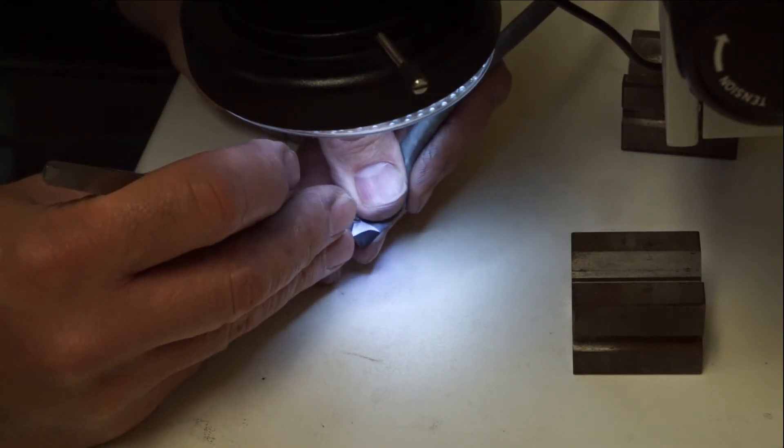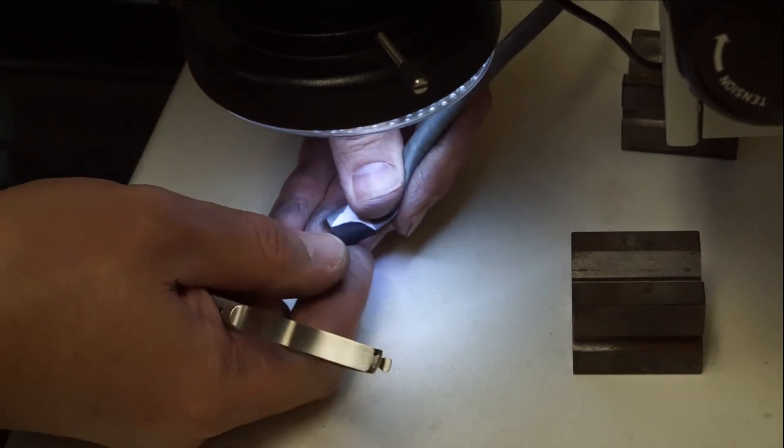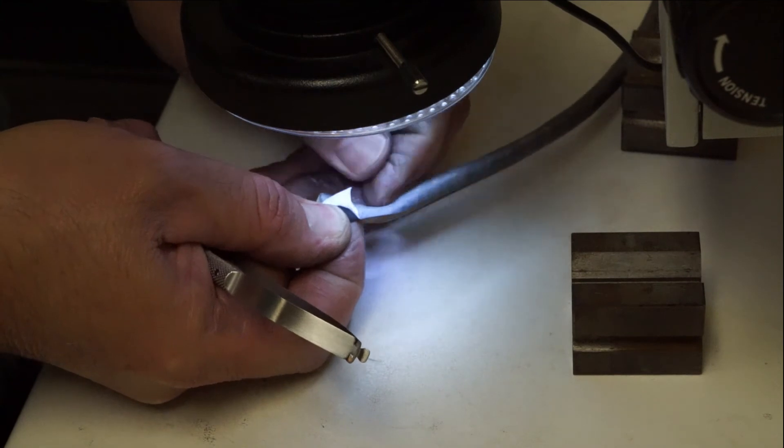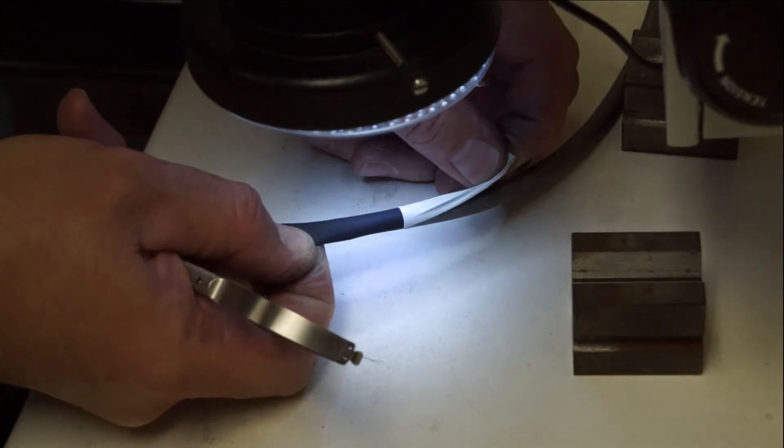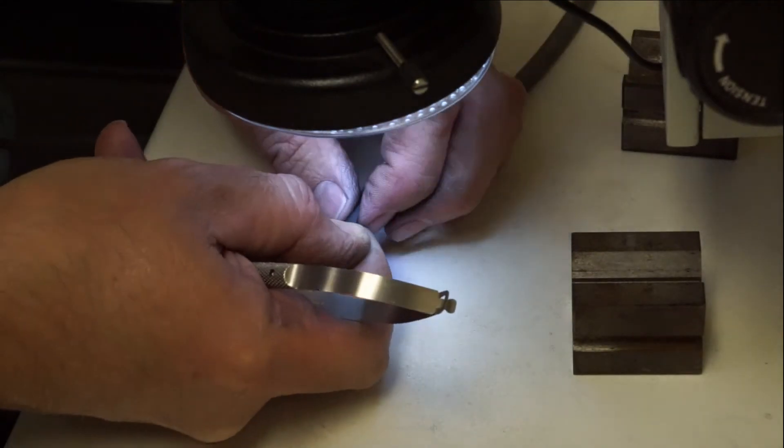The replacement is not due to any leakage or kinking issues but because after seven months of heavy usage the channel itself has started to lose its shape which becomes an issue for the instrument when inserted because the channel becomes oval shaped.